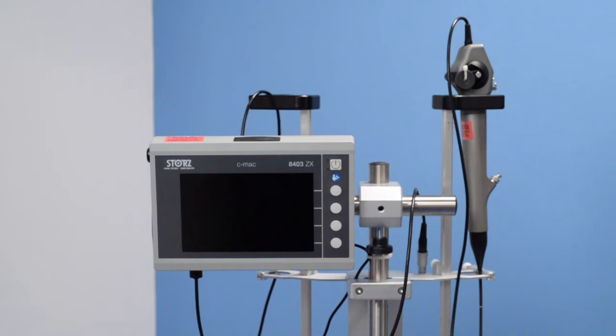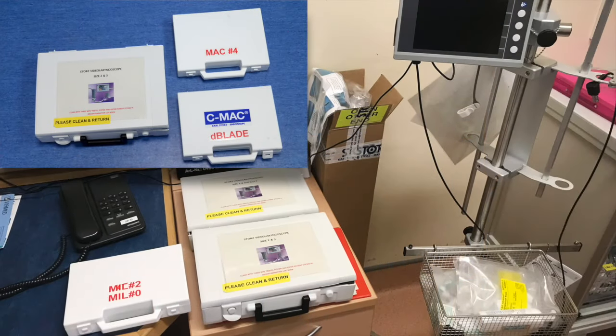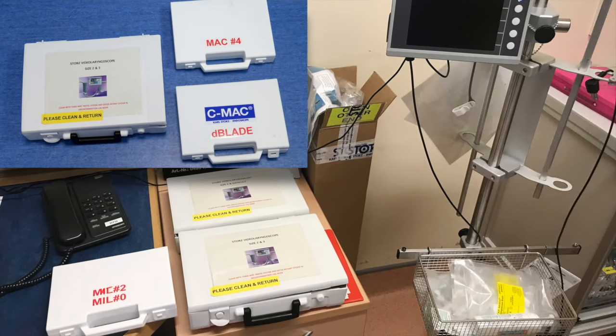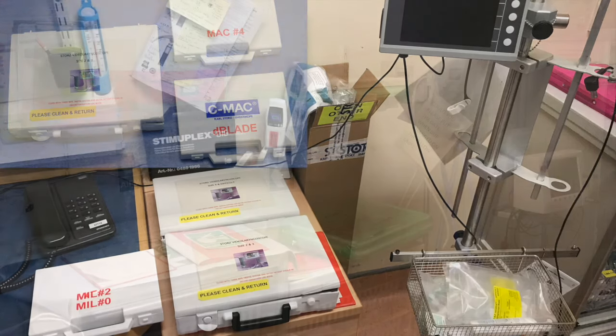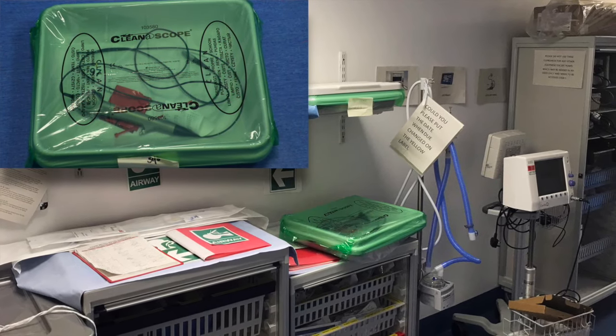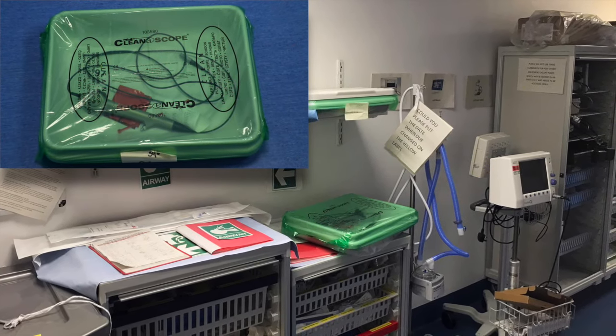This is a general example of how you may find the CMAC in its stack. You may have to retrieve the fiber optic scope from a main theatre corridor, or it may be in the stack ready to use.